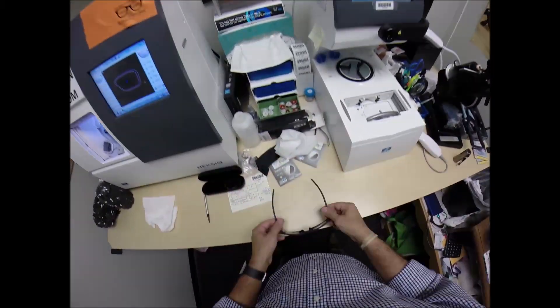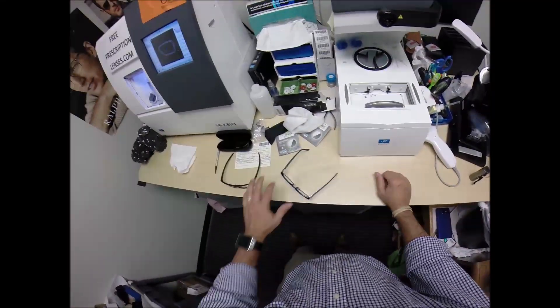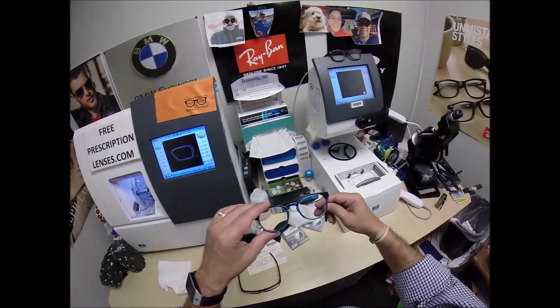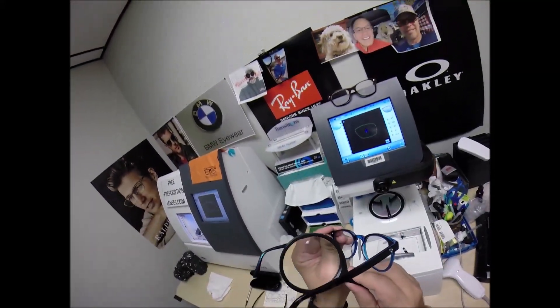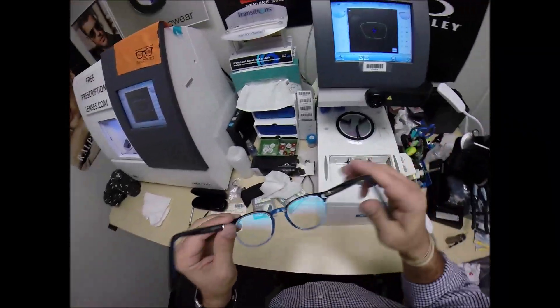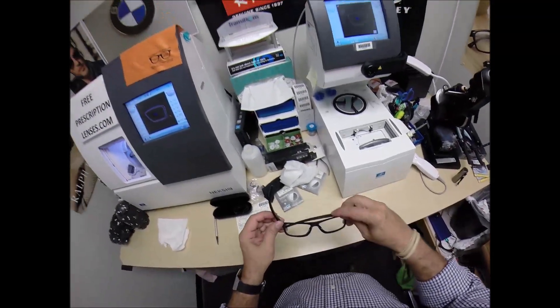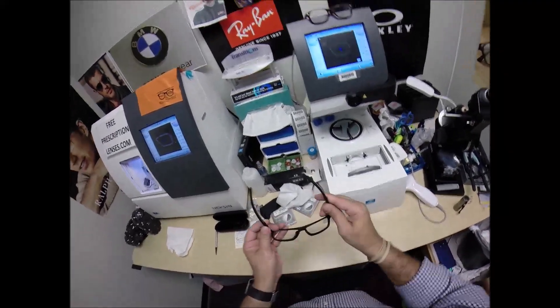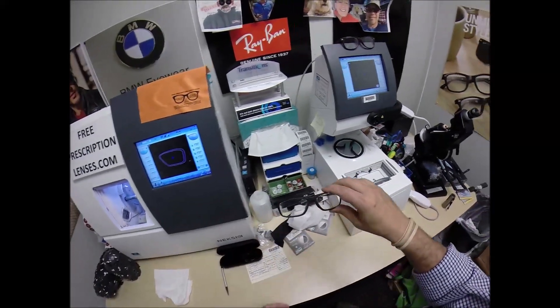The three points are: one, two, and the bottom of the frame being three. I set them on the counter and press down — there is no wobble. I close each temple to make sure they overlap perfectly and that neither temple is askew. Those are both even. This is what your lenses look like.